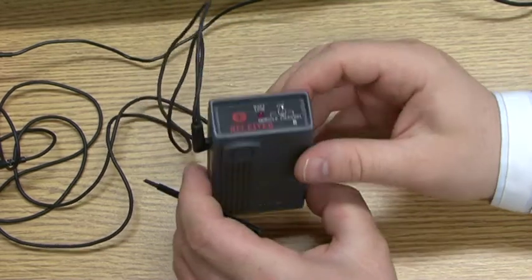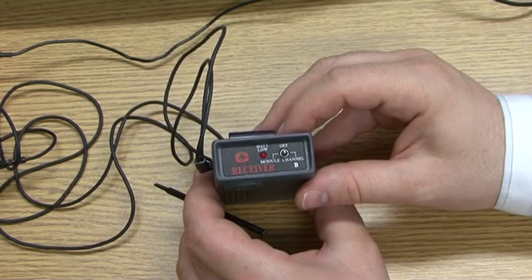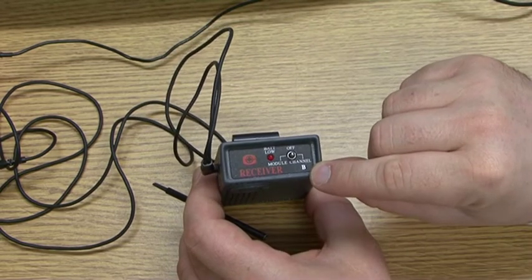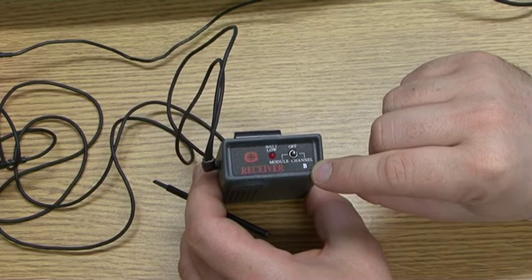Looking at the top of the receiver, the letter indicates the frequency channel B. Moving the toggle switch to the channel B position turns the receiver on.